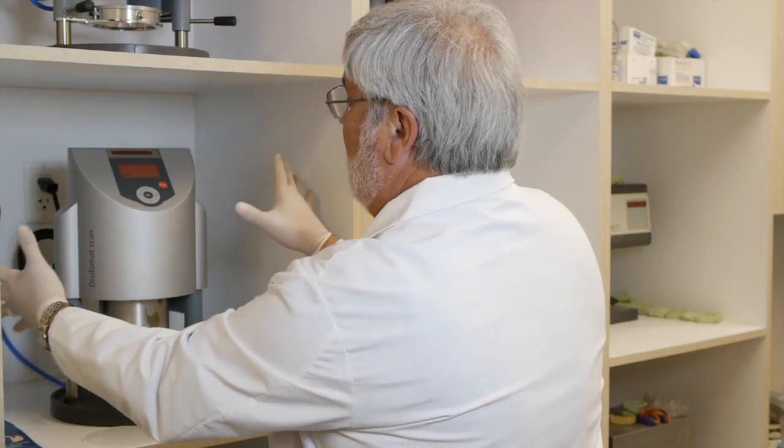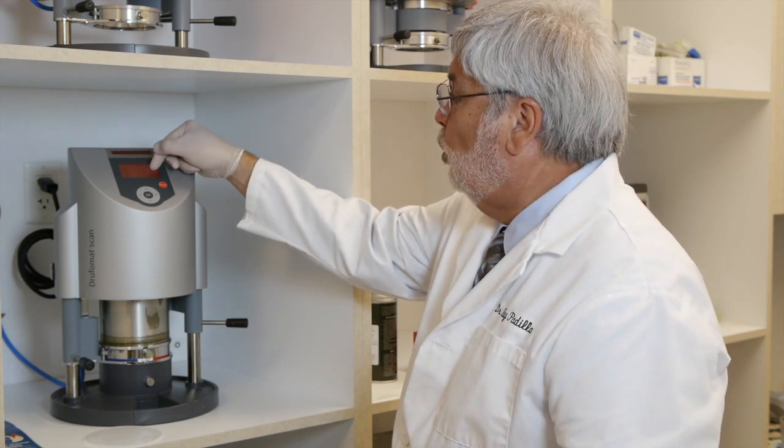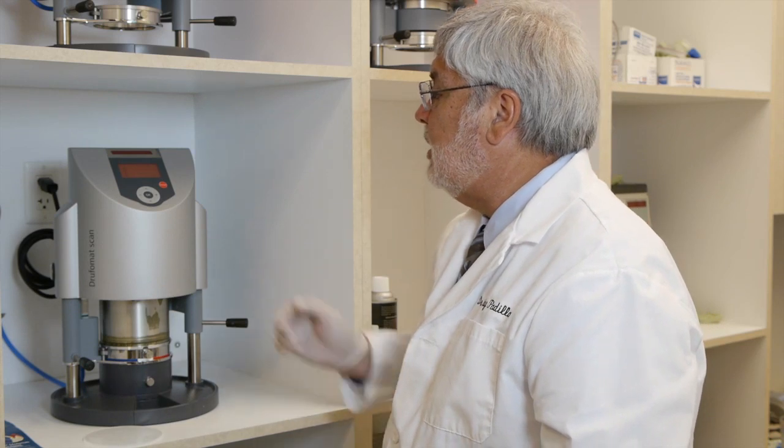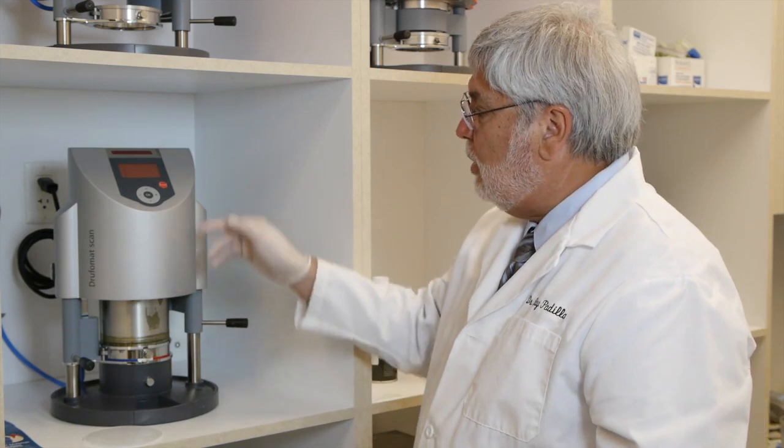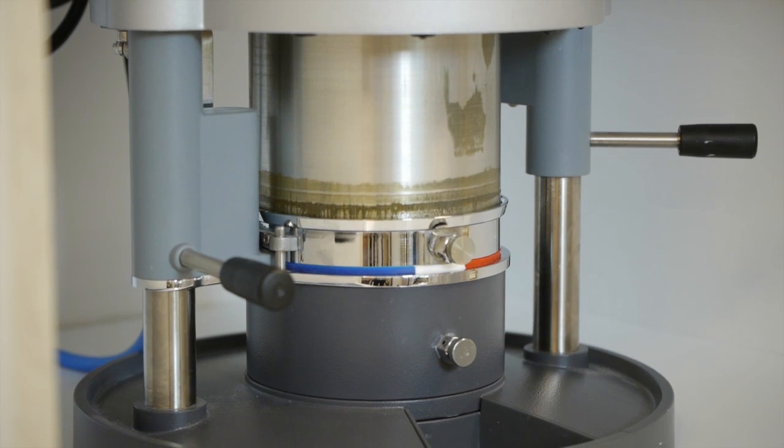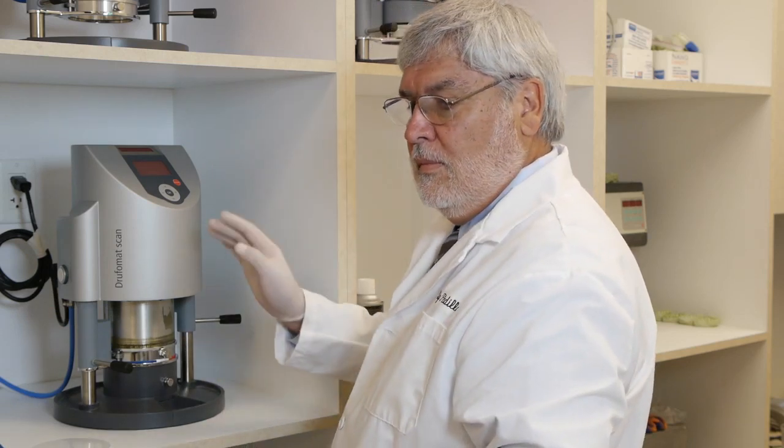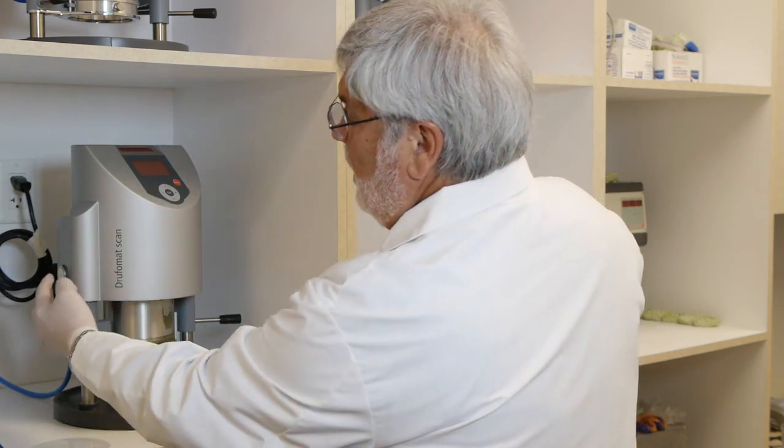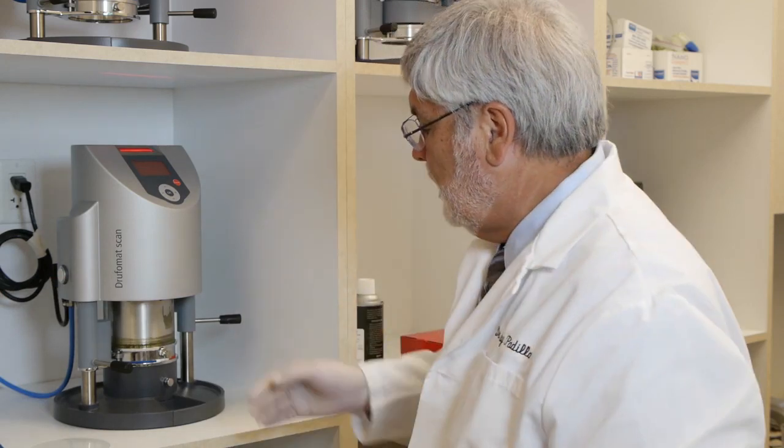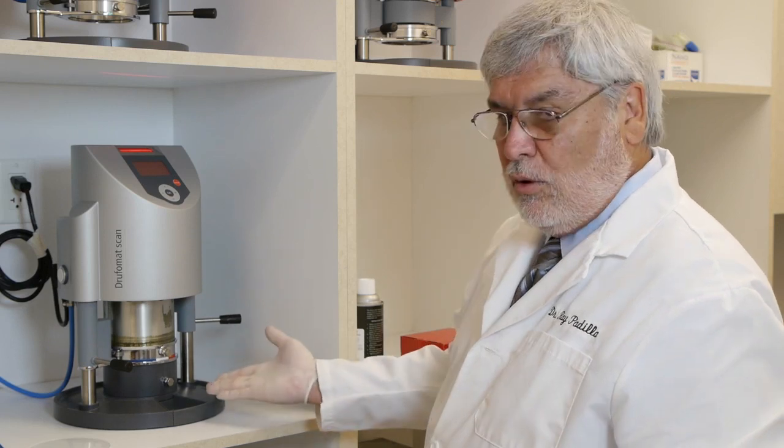Now you heard the second beep. Now I can let go. Now the heating time says zero because it's already heated. Now the cooling time is six minutes. So we're down now to 5:48, 5:47, etc. So now that's going to go down to zero. Once this goes down to zero we can open the cylinder and you'll have your pressure thermoformed first layer. There's my beep and now I know it's cooled sufficiently. I'll press this white button. All the pressure will release. You may want to release this added pressure. Now that will rise by itself.